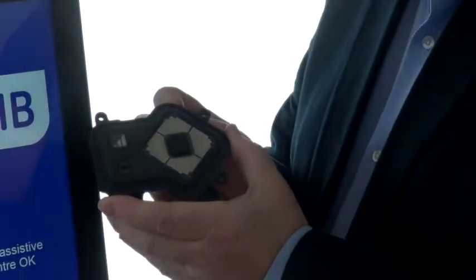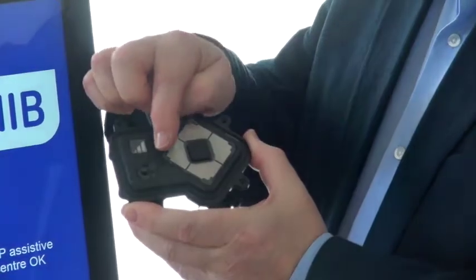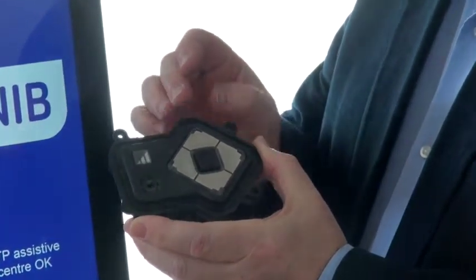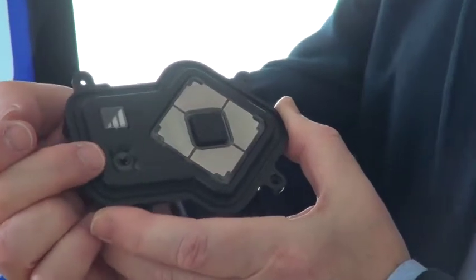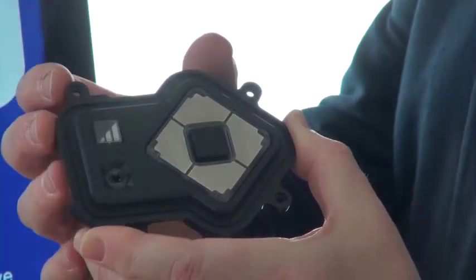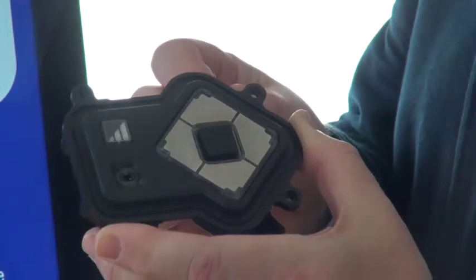The device consists of a navigation keypad which enables a user to navigate through content displayed on a touch screen. It also has a jack plug socket that enables a headset to be connected, so the device can actually provide audible descriptions of the content on the screen.